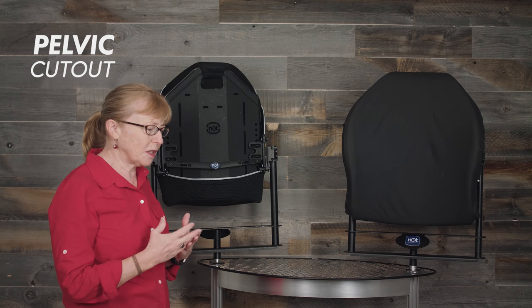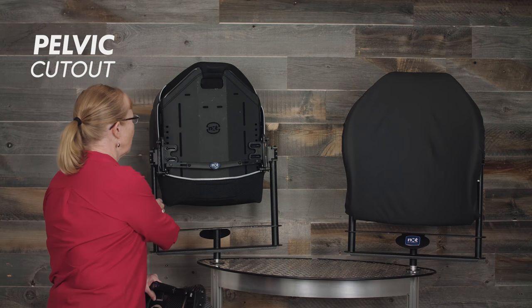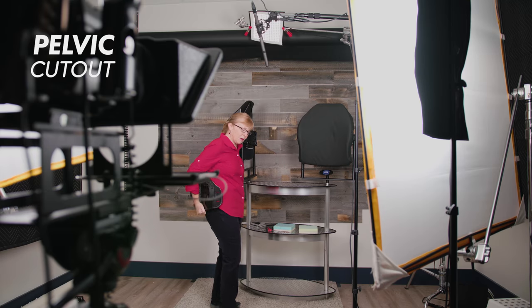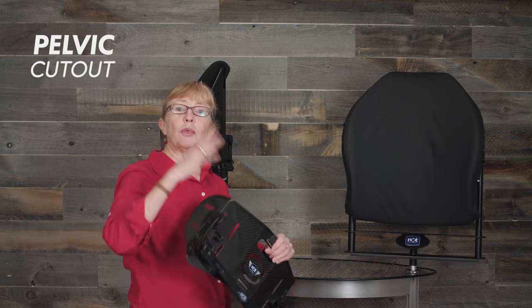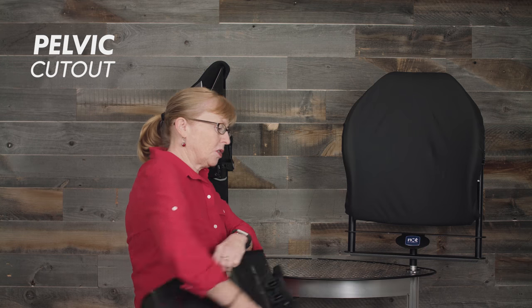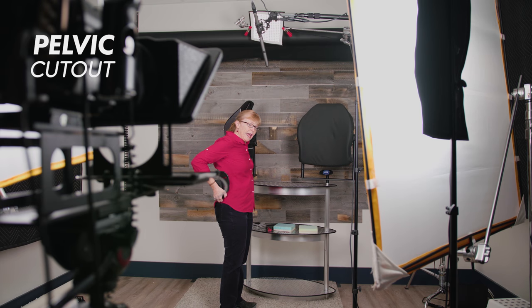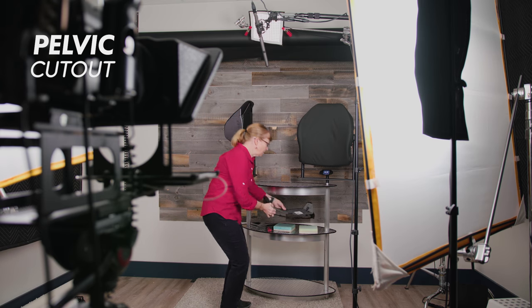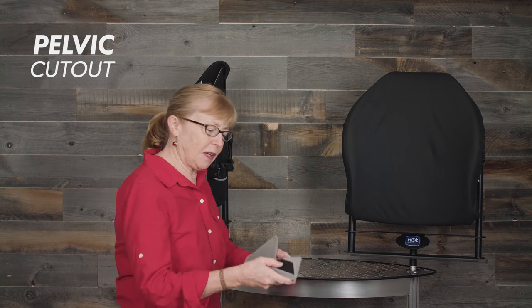Another important feature is the pelvic cutout and its role in positioning. All of our hardware has angle adjustability, so if a back support comes down too far and you angle it, you end up pushing the pelvis forward — which in effect creates a recline. Instead, with the pelvic cutout, you aim the PSIS to the cutout to get support at the PSIS, with the pelvis extending slightly beyond, and then angling the back support creates proper positioning. This is only applicable if somebody has the ability to achieve that posture; if they have a fixed posterior pelvic tilt, it is a different scenario altogether.